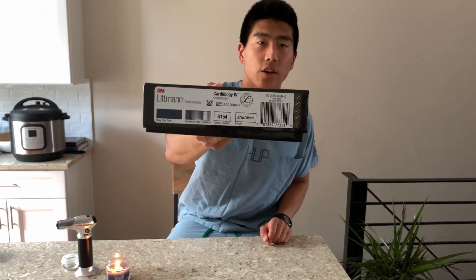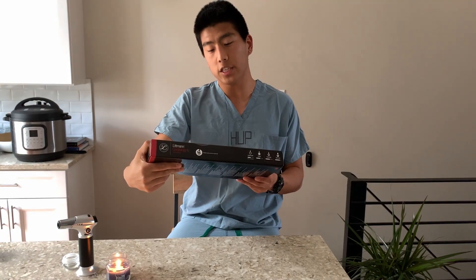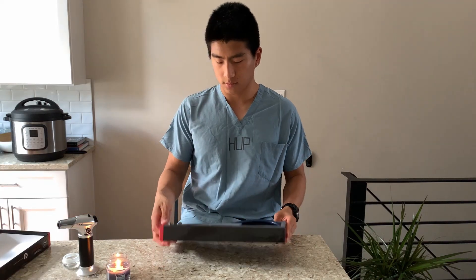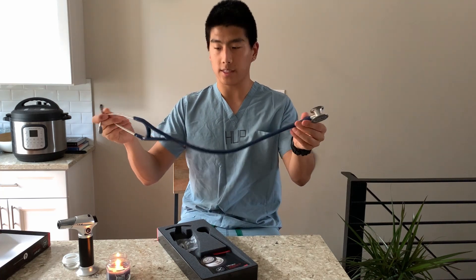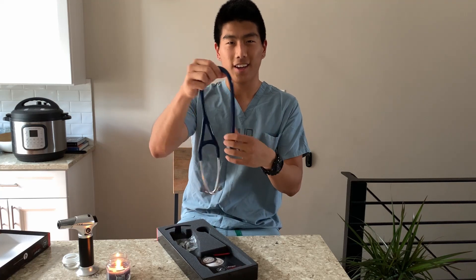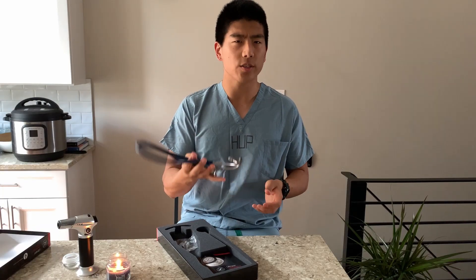So as you can see the stethoscope has a navy blue color for the tube and the chest piece is chrome. I like how it's laid out in the foam — it's really nice actually. The box includes the stethoscope with a nice navy blue color — the same color as the blue for UPenn. The tube is a lot thicker than I thought it'd be.